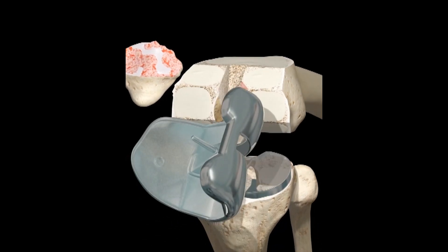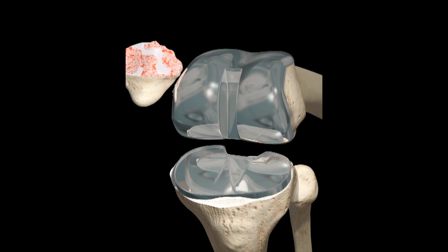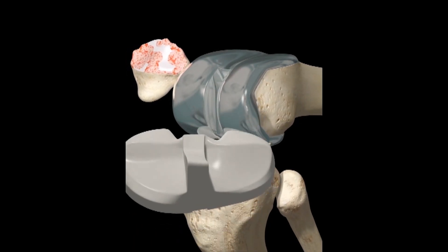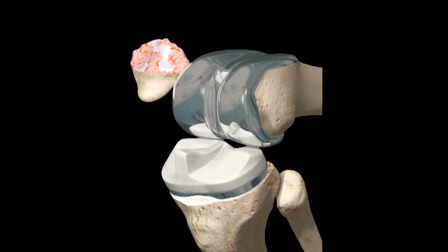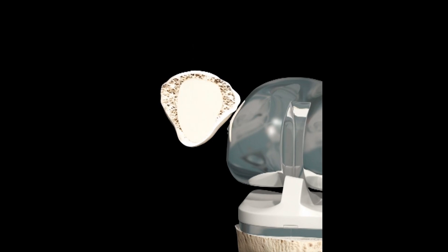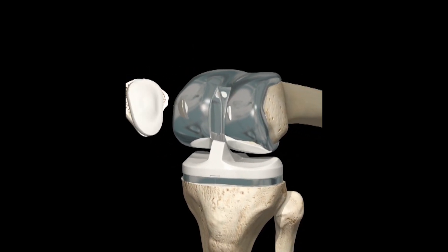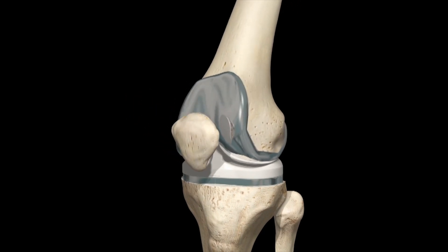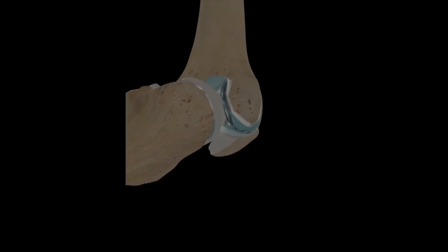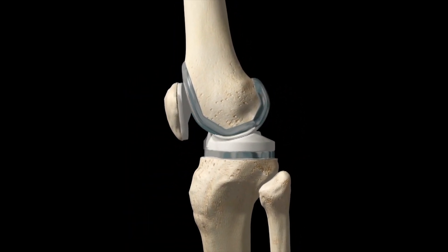A polyethylene surface is applied to the tibial plate to assist non-abrasive articulation with the metal femoral plate. A polyethylene plate is cemented to the articular surface of the patella to improve articulation.